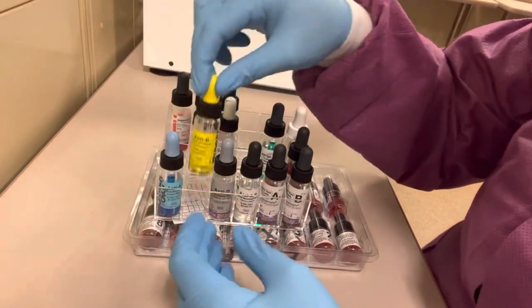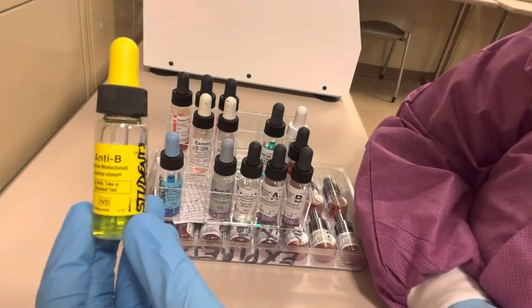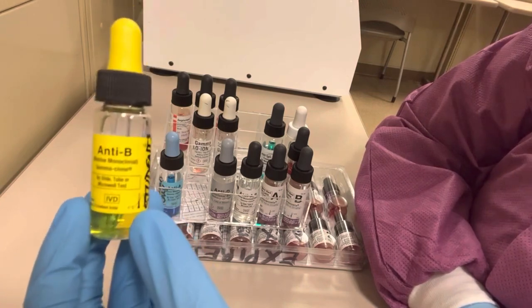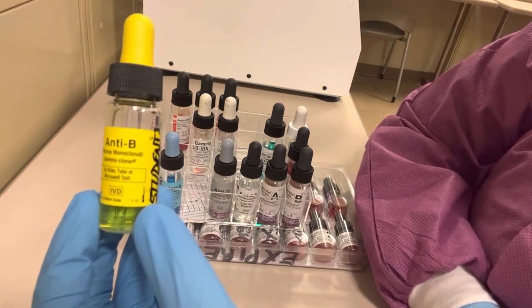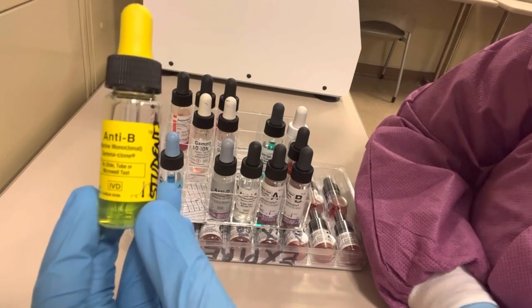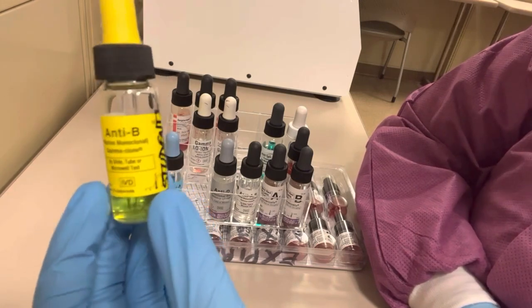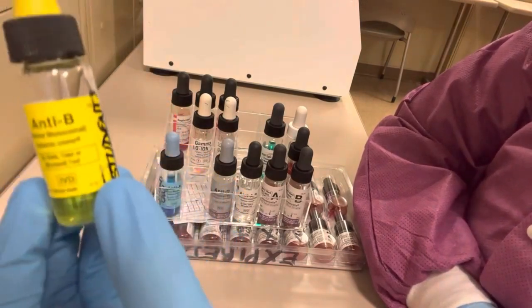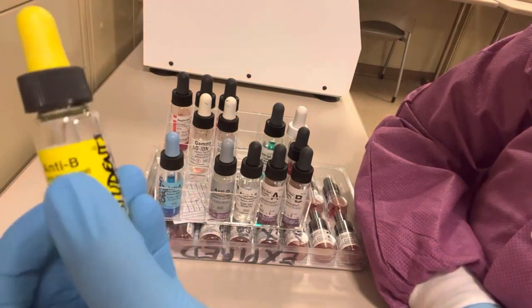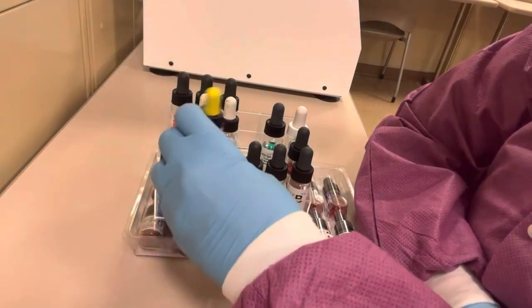The next reagent is anti-B, also used in red cell determination of the ABO blood group. This contains antibodies towards the B red blood cell antigen, so if the patient's red blood cell suspension agglutinates with this reagent, their red cells have the B antigen. Anti-B is always yellow in color, but again you need to read the label to make sure it is the reagent you think it is.